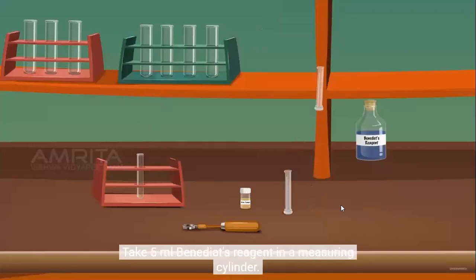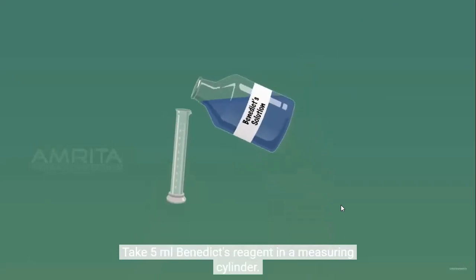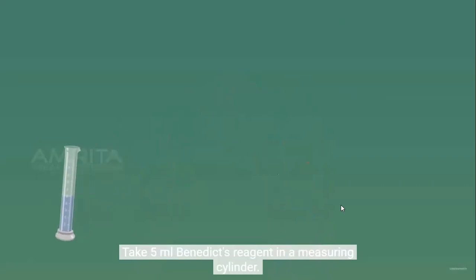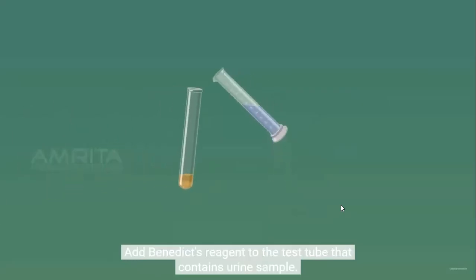Take 5 ml Benedict's reagent in a measuring cylinder. Add Benedict's reagent to the test tube that contains the urine sample.